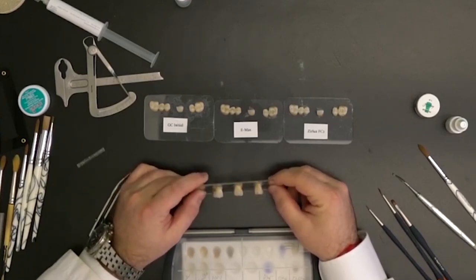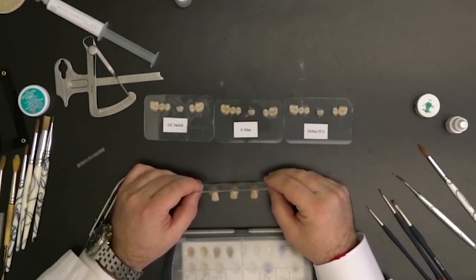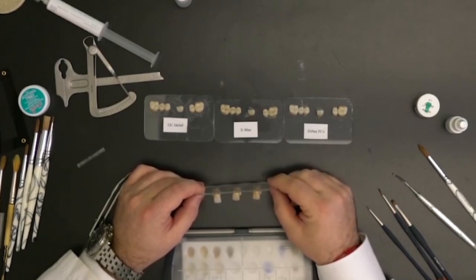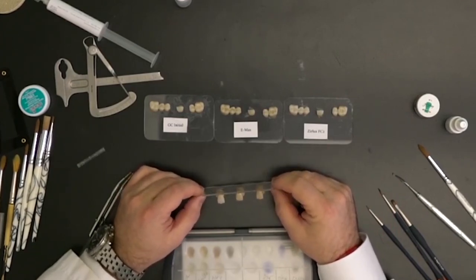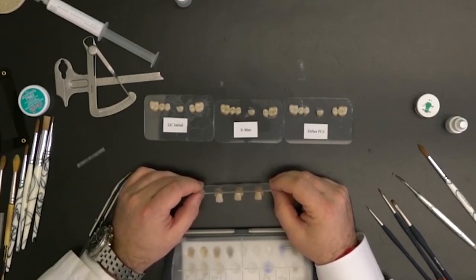These stains provide you the ability to do so, and anterior staining is a little bit different than posterior staining because you have different surfaces. The way of treating the surfaces is different as well. A lot of the time you can, in the green state, really affect the way the final stage will look.